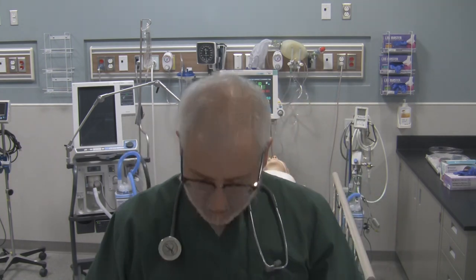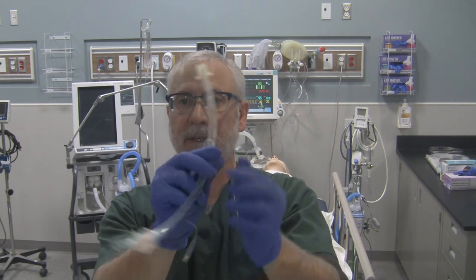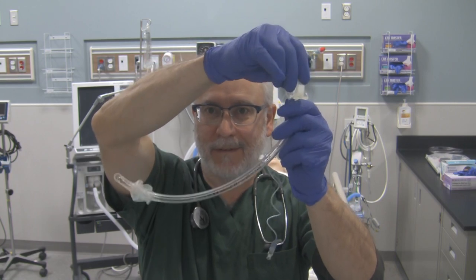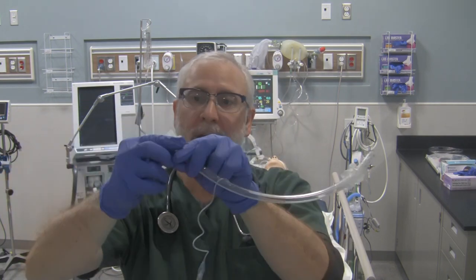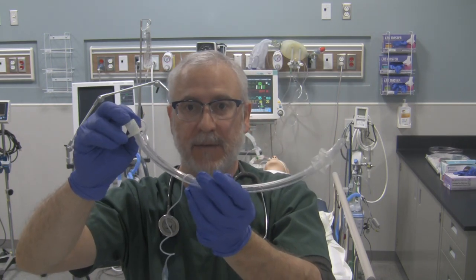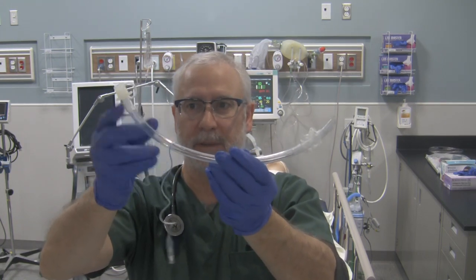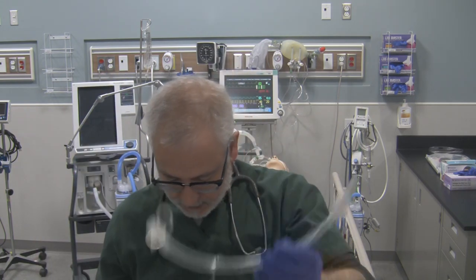The next tube is called an endotrol. The endotrol has a ring on it, and this ring is attached to the distal end so that when the tube is inserted, if you pull on the ring, the distal end moves. What that means is if you're inserting this nasally for a blind nasal intubation — or orally — you can advance the tube and pull on the ring to make the tube go more anterior, giving you a better chance of reaching the patient's trachea. It's really good with nasal intubations but can be used for oral intubations as well.